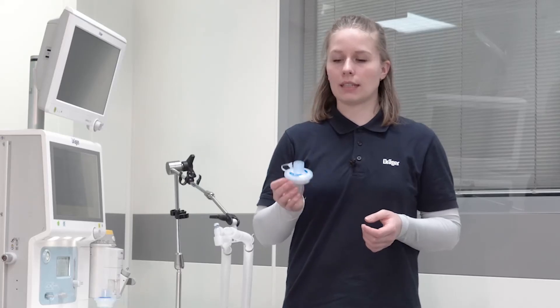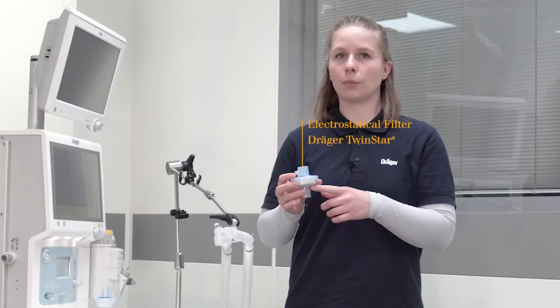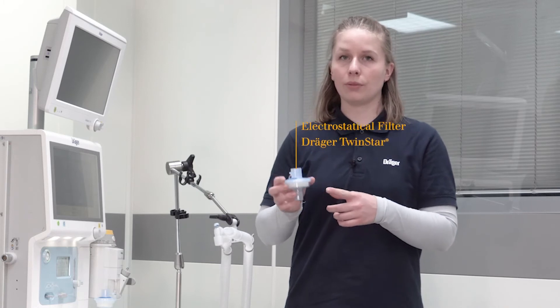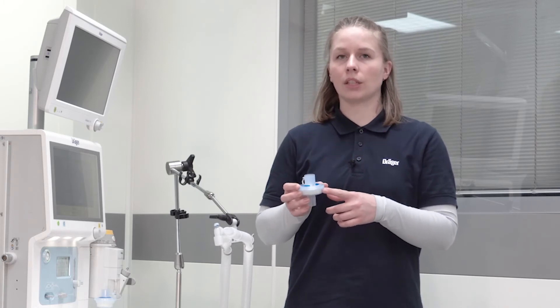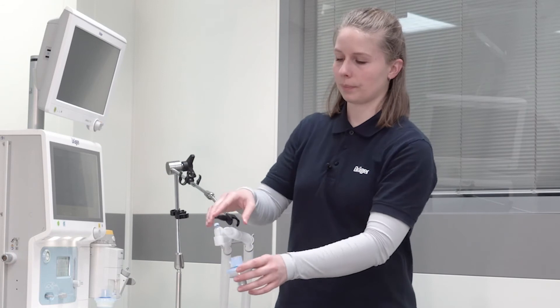This filter has an electrostatic filter and a heat and moisture exchanger. Therefore, this filter helps to better humidify the breathing gas.